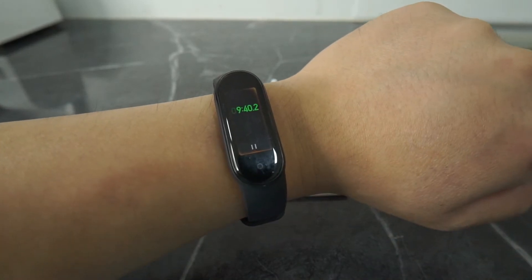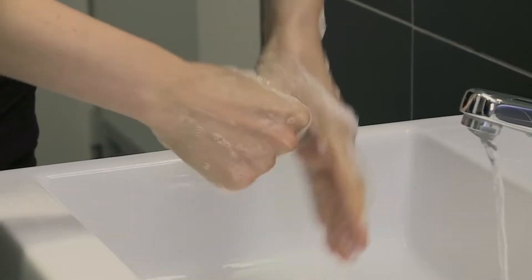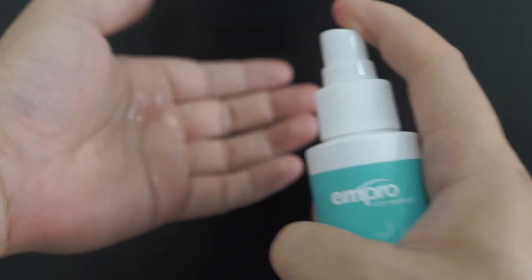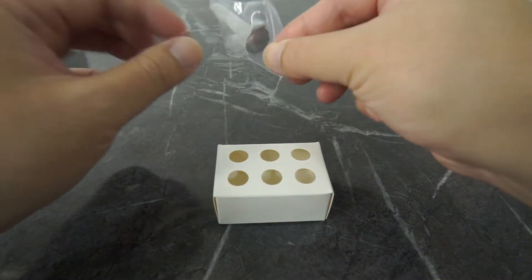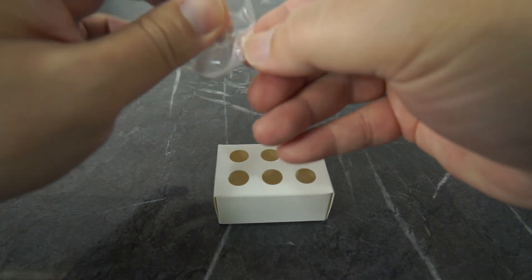You are also required to have a clock or timer. Before you start the test, you are required to wash your hands with hand soap and water, or at least hand sanitizer. Before starting the swab test, do not eat, smoke, chew, or drink any beverages apart from water.